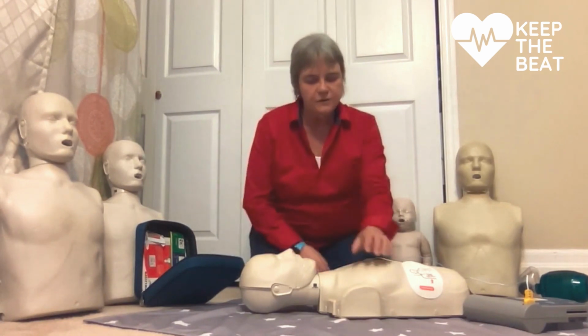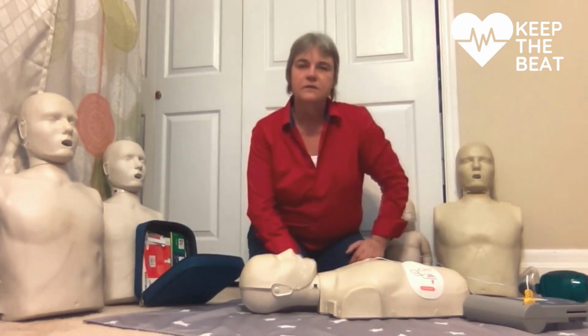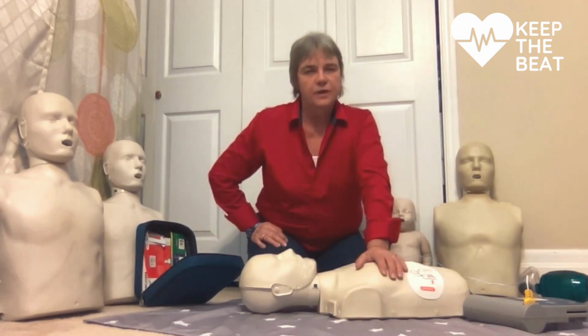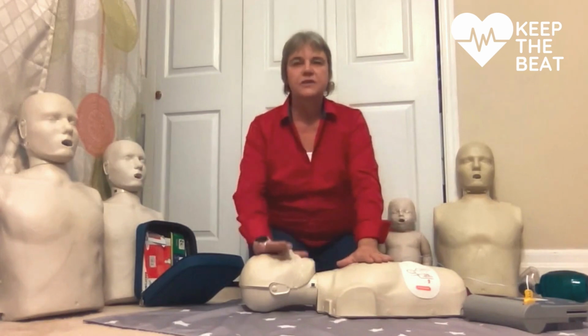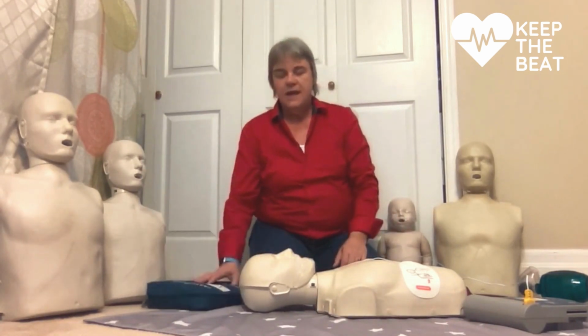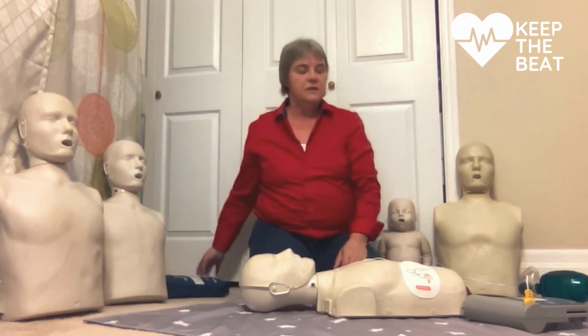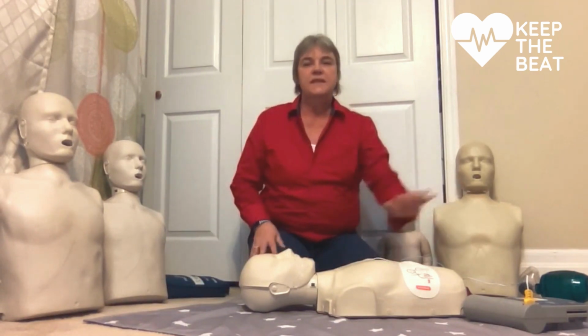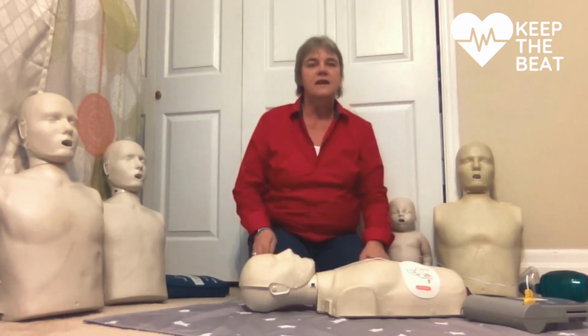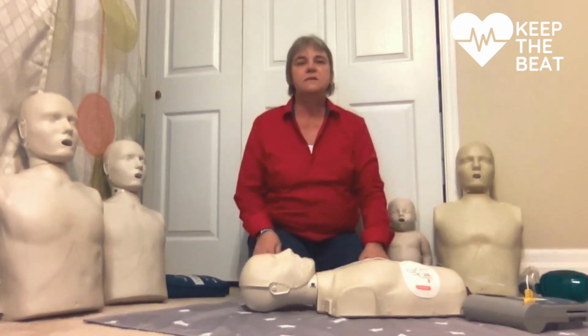I go back to my circulation. Do they have a pulse? No. Then C is for compressions. 30 compressions, 2 breaths. Again, I do that for 5 cycles. If there's 2 of us, we can switch when the AED gets ready to reanalyze, and it will analyze every 2 minutes.